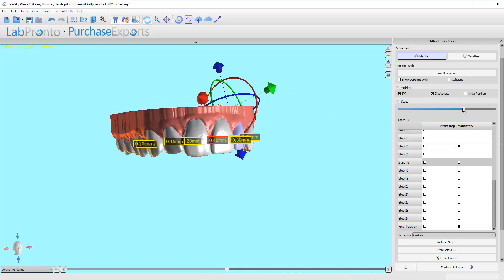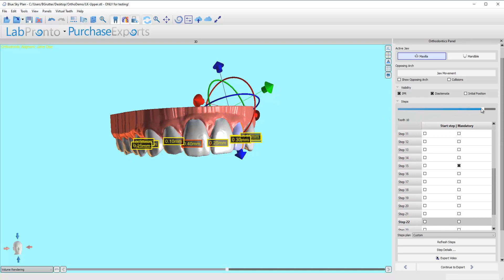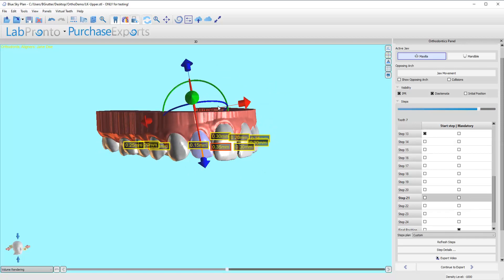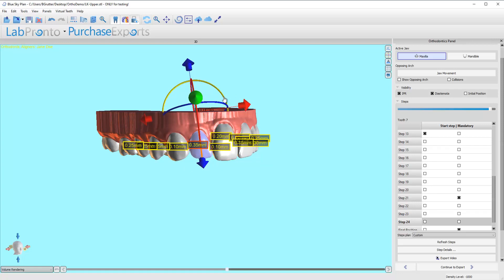We do have a heavy contact in here, but let's figure these things out one at a time. So we've got a heavy contact here. What I'm going to do is move this tooth distally to try to open up that space a little bit. Click refresh steps. Now that lateral to central contact gets a little heavy right there. Once again, I'm going to tweak this back a little bit and have it favor that distal collision a little.